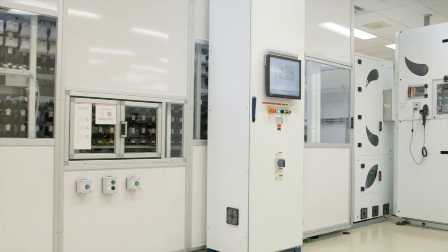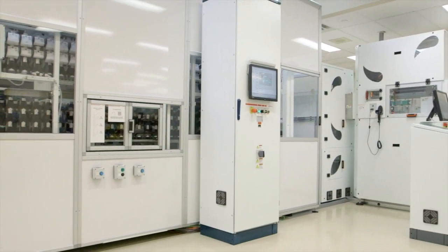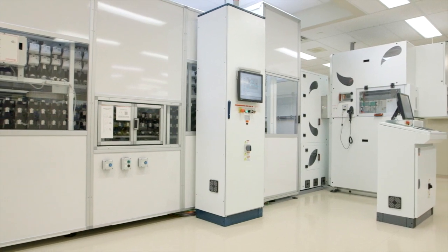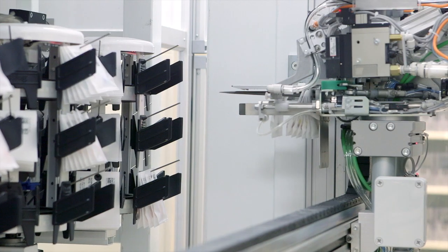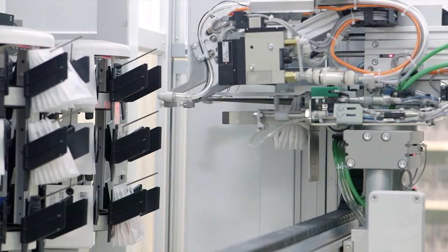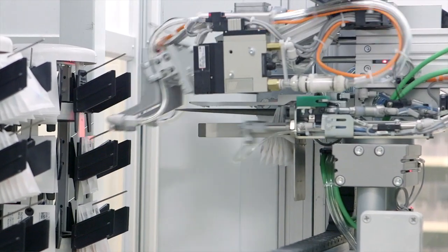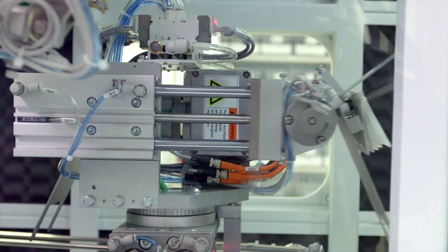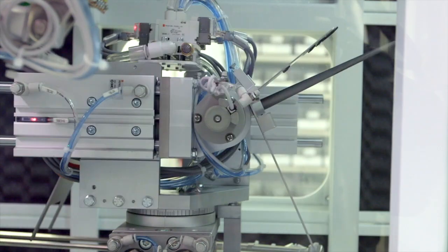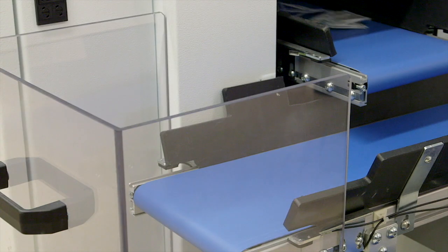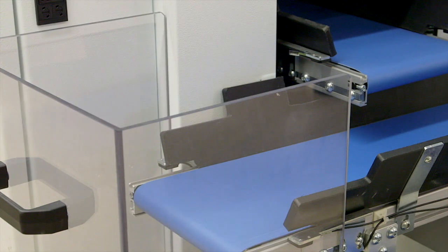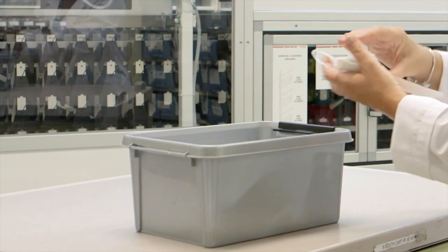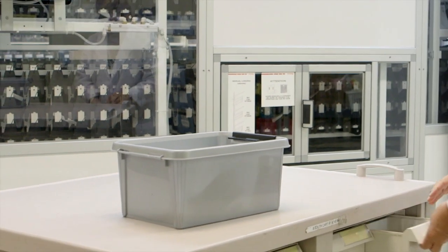By eliminating manual processes, improving workflows, and reducing the opportunity for error, the pill pick automated packaging and dispensing system is the only fully integrated system that eliminates human touches during the packaging, storage, and dispensing processes, virtually eliminating medication errors in the pharmacy and at the bedside.